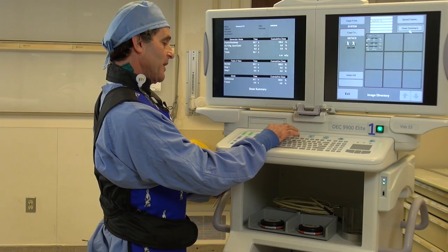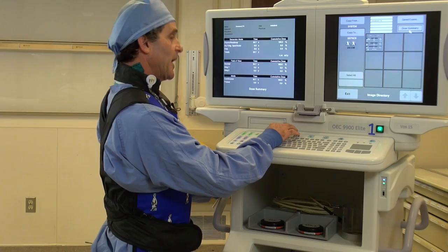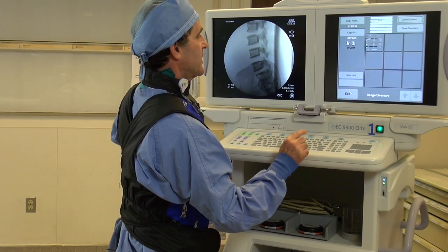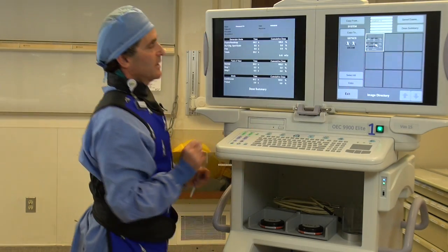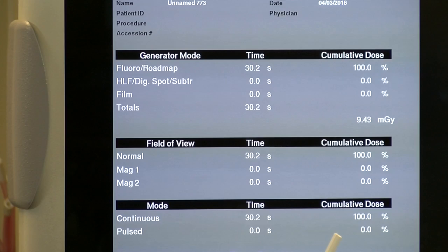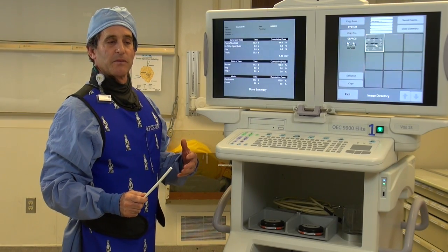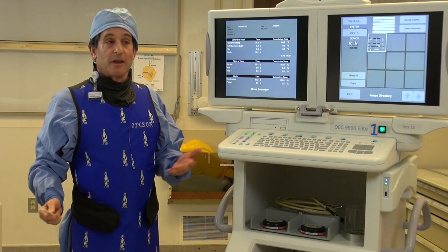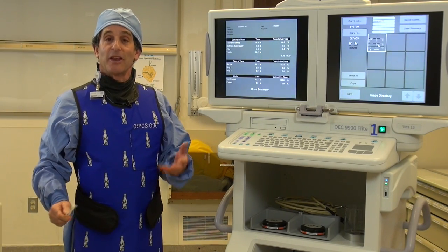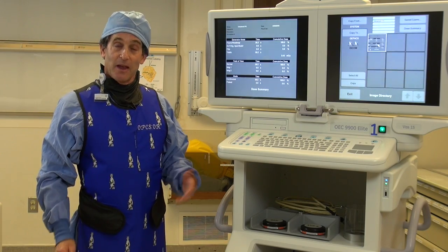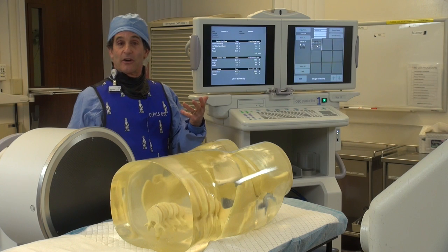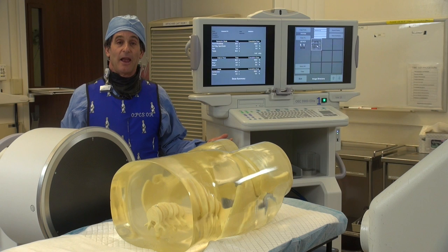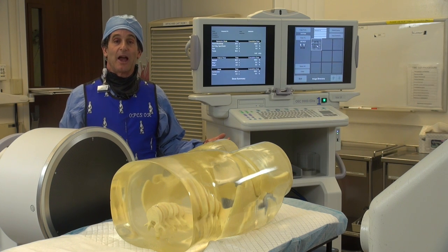Now when we go back and look at the first one — the regular, unnamed 773 — we're at 9.43 milligray. So you can see: 4.44 versus 9.43 — it's about double. And that's what it's supposed to be. You're supposed to be getting half the mA, and because you're using half the mA, you're also getting half the dose. So it totally showed you that when we went to the low-dose, we got half of the dose that we had on the default setting.